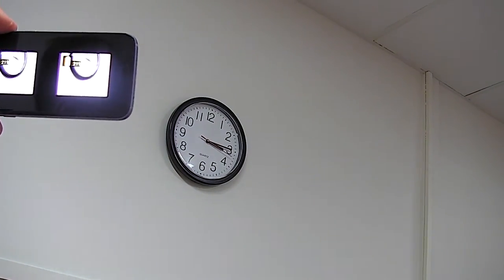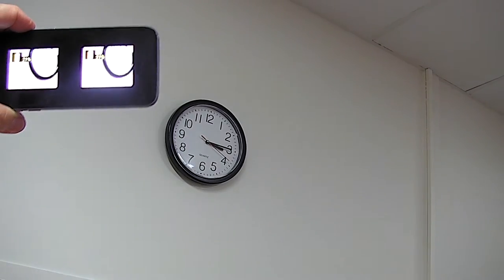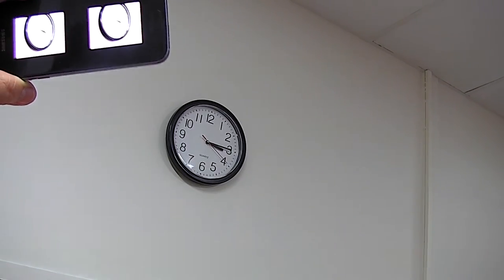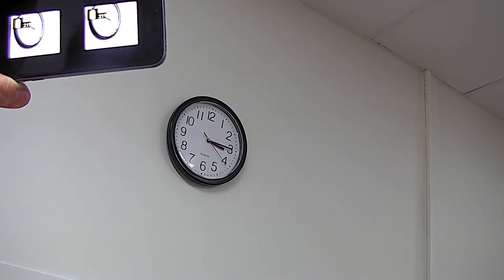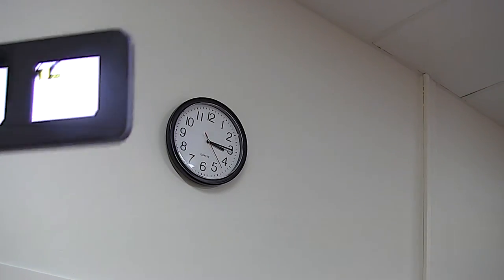So these are the sorts of things we can achieve with the IrisVision for distance magnification, but also for closer things like reading.